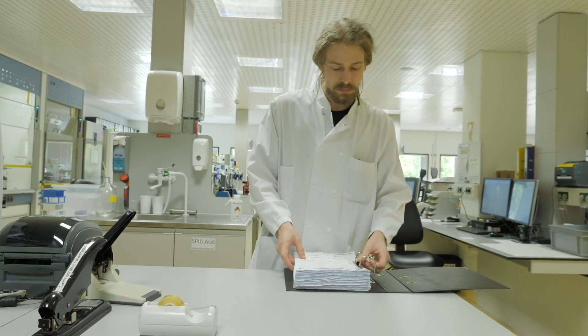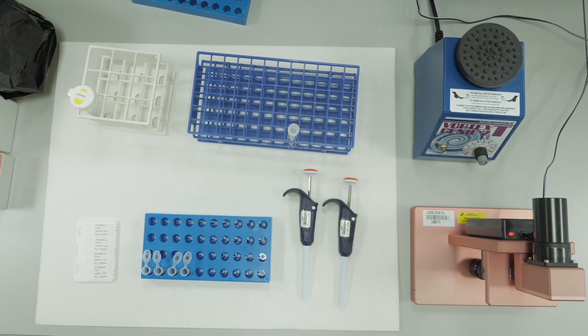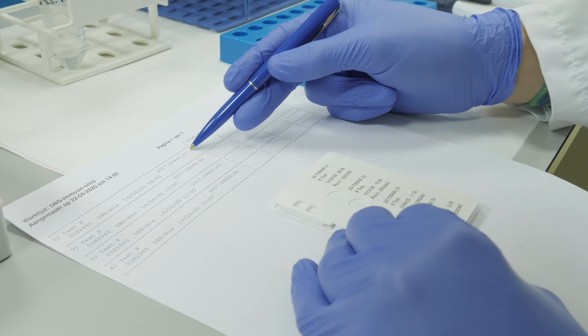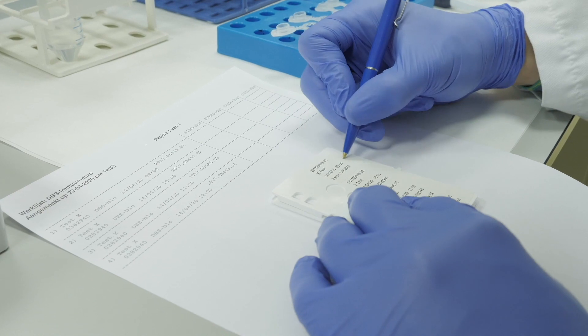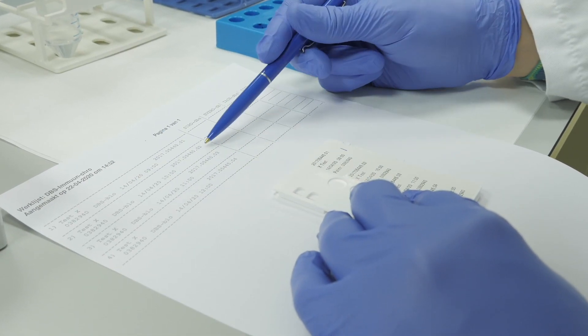Following registration of your samples, the analysis itself will start. To prevent any mixups from happening, the technician first double checks whether the correct samples were selected for today's analysis.